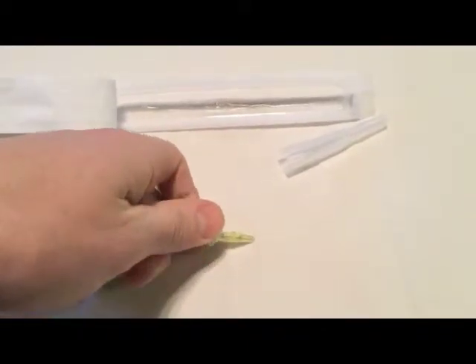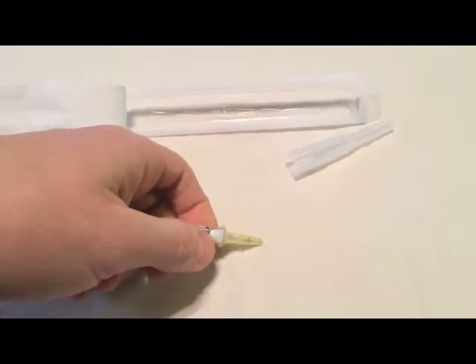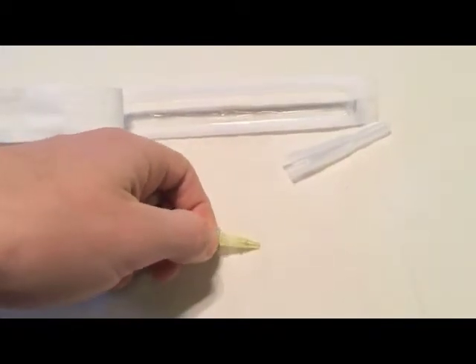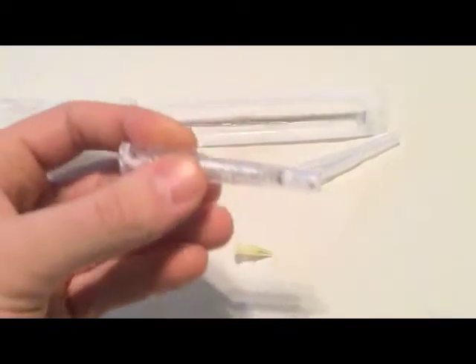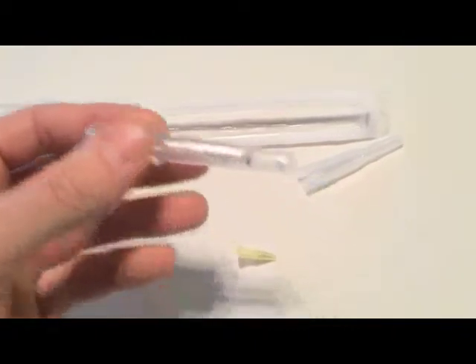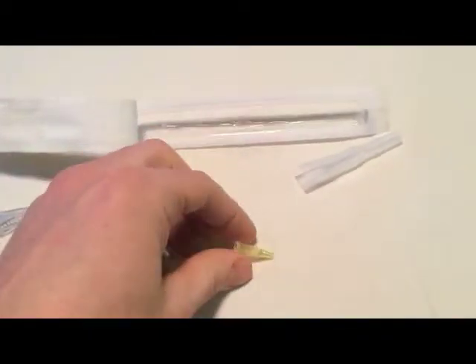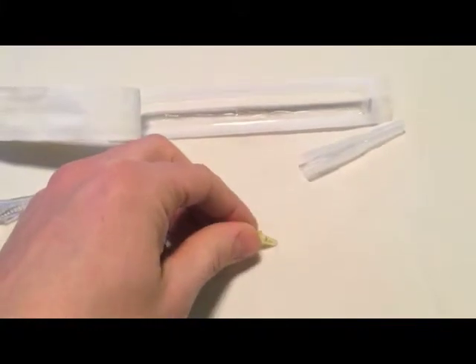the needle then is removed by pressing this button, safely contained in here so it can't poke anybody, and all that is left is the catheter with the small tube.